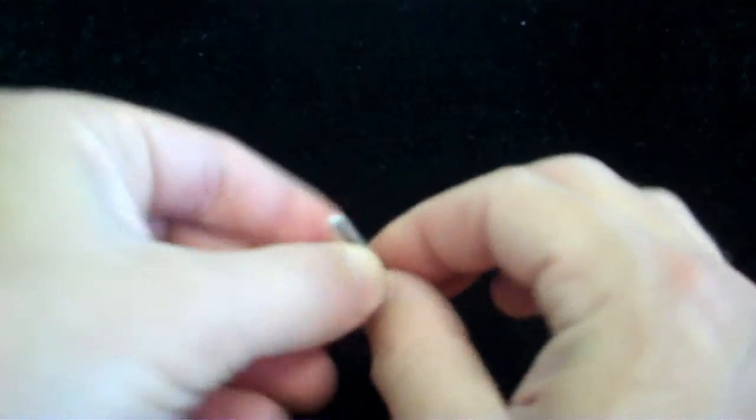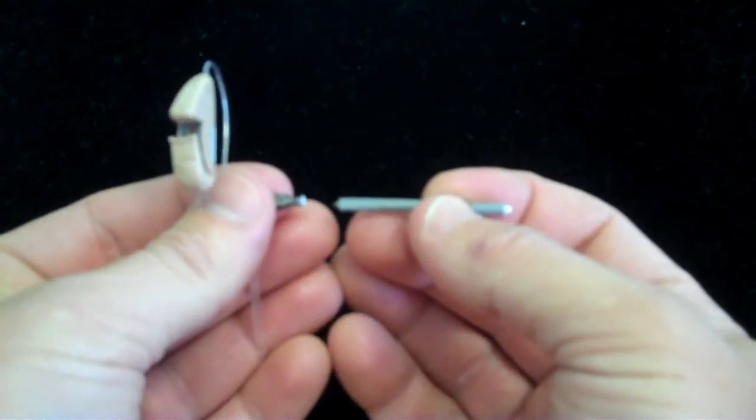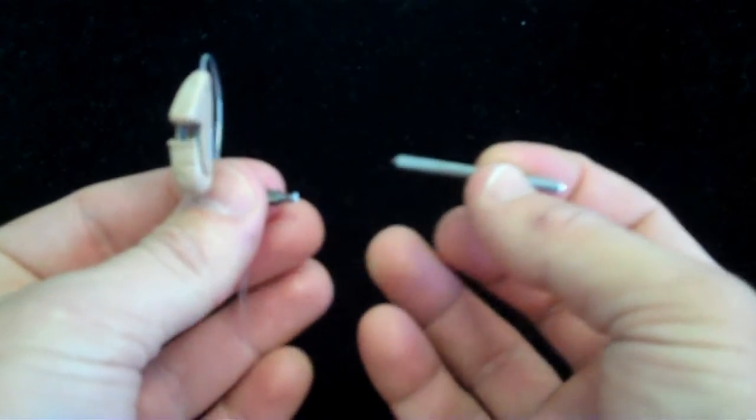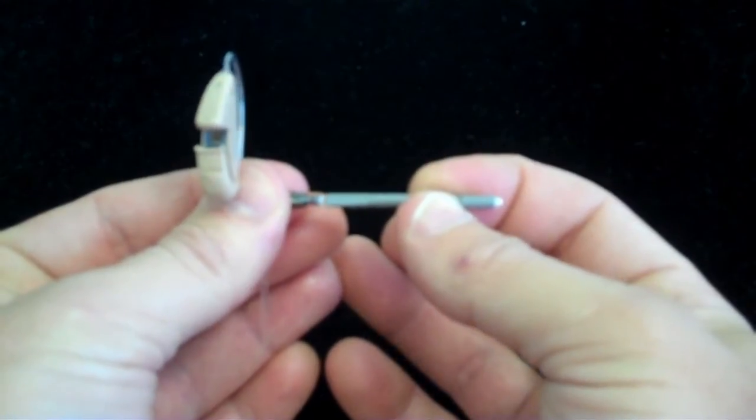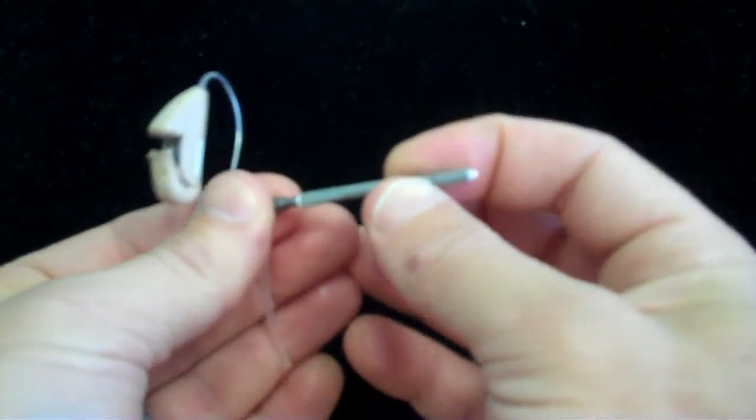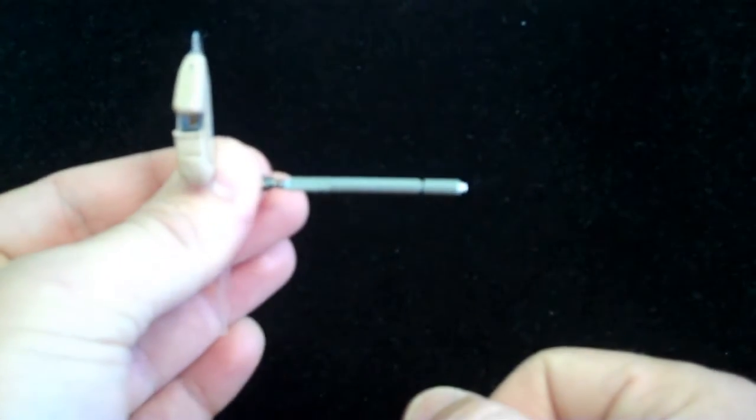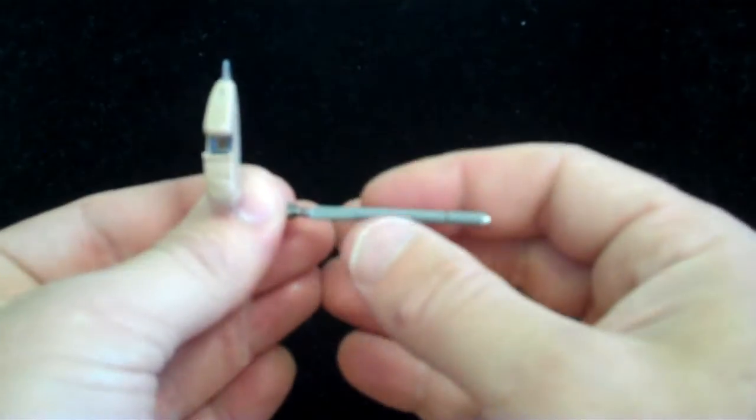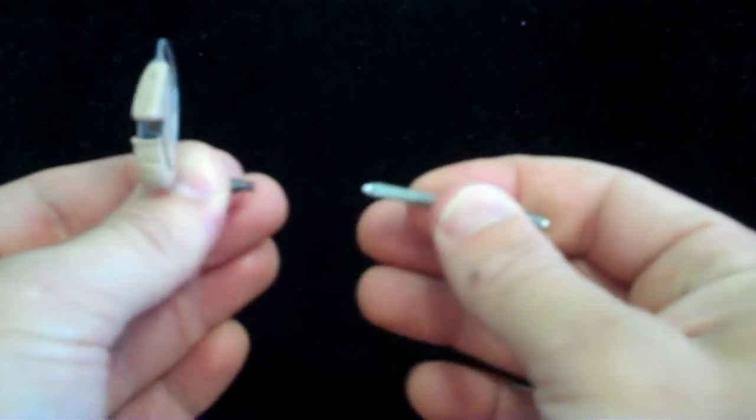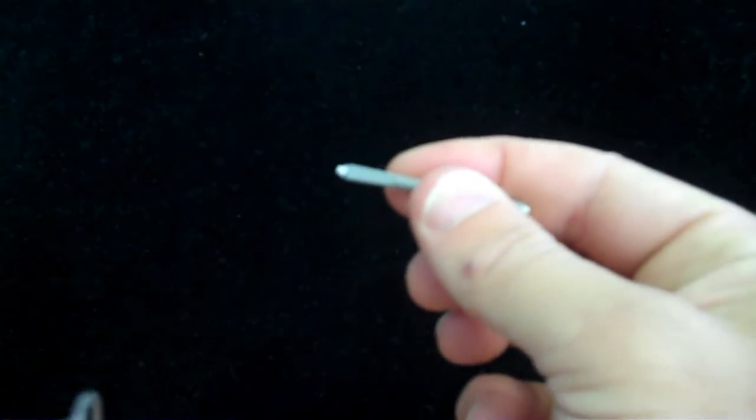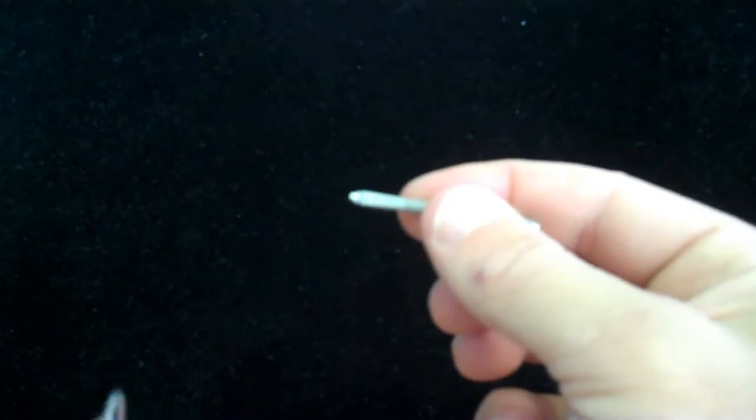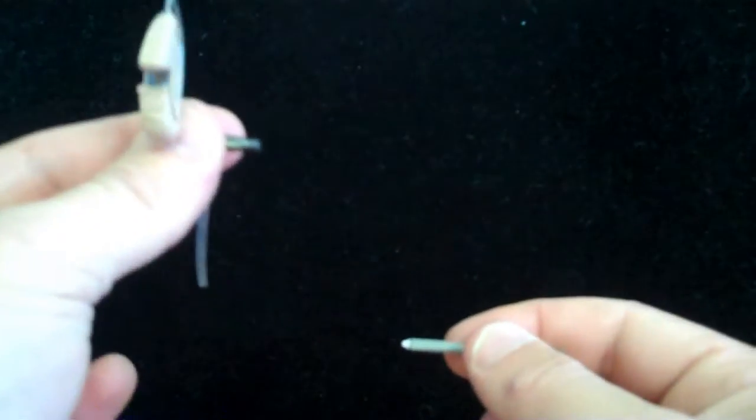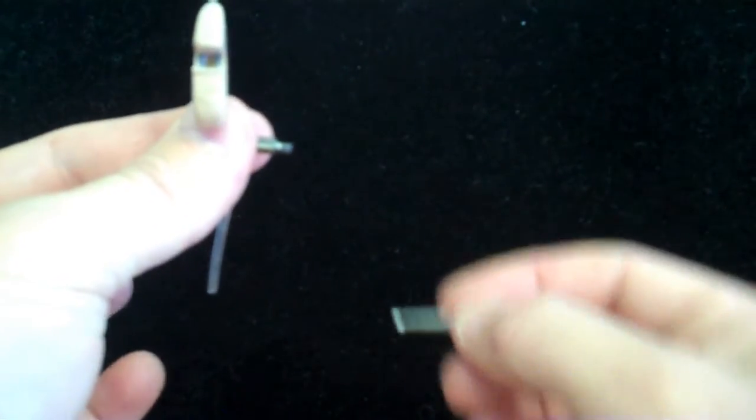The hook is used to remove the old filter. I'm going to take that little hook and push it right into the center of the wax trap. Ideally, when I pull, the wax trap comes out with the tool. So now we have no trap on the end here.